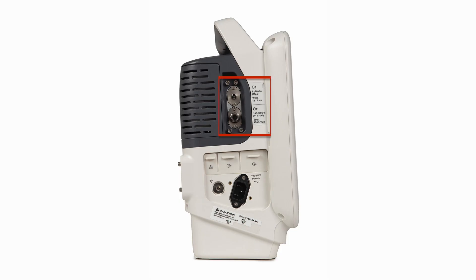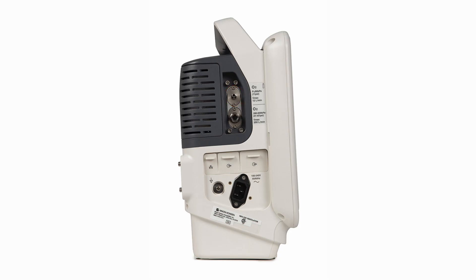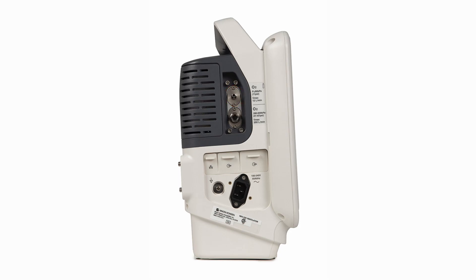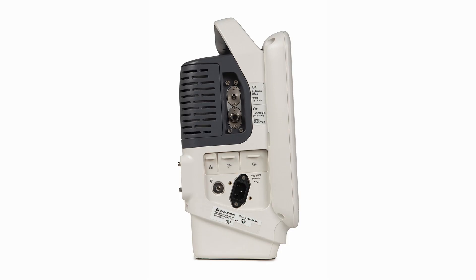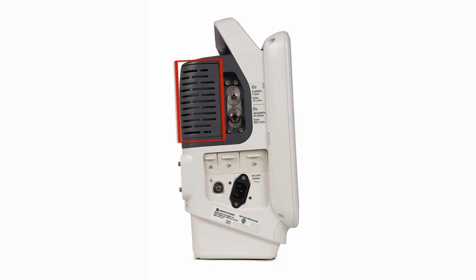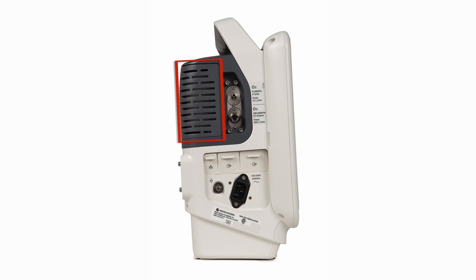There are two oxygen inlet ports, one for high pressure and one for low pressure. Since the NKV-330 incorporates a built-in blower to provide an air source, there is no air inlet port. Air going to the internal blower first passes through a dust filter, then through a HEPA filter prior to reaching the blower.